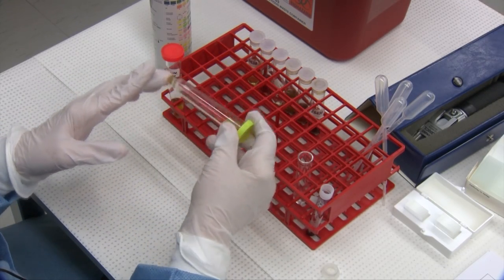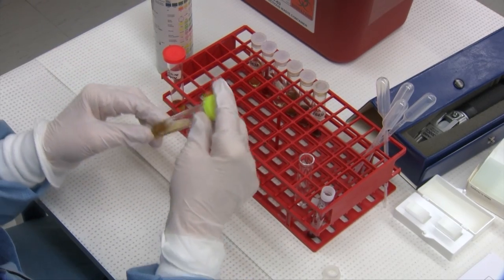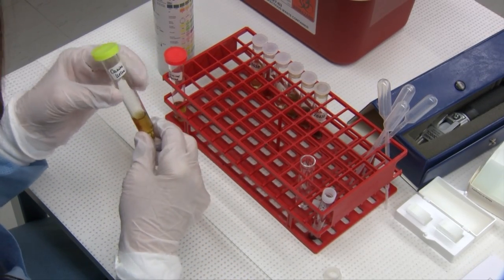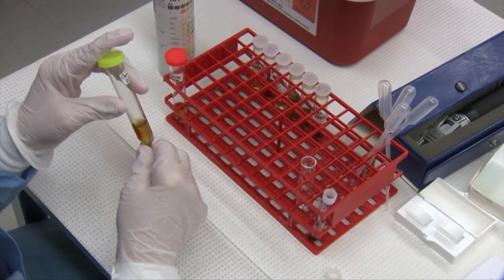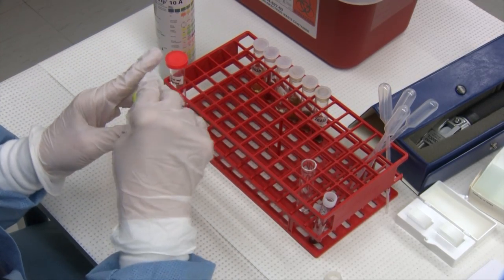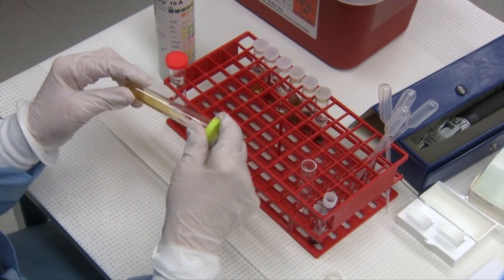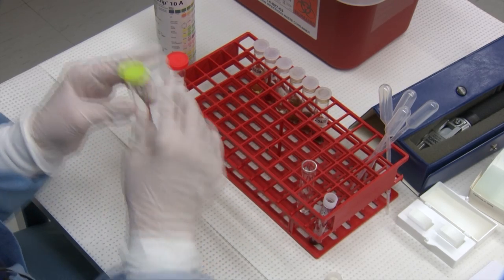Today I'm going to show you how to do a routine urinalysis. We start with 3 mLs, which is used for interpreting microscopic sediments. If you get less than 3 mLs, you should record it on your report form that you had less.